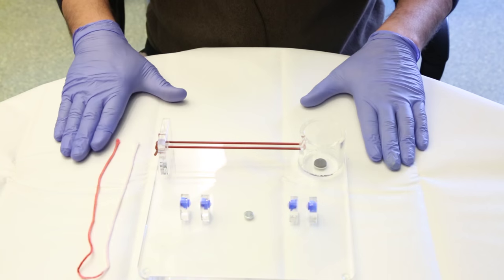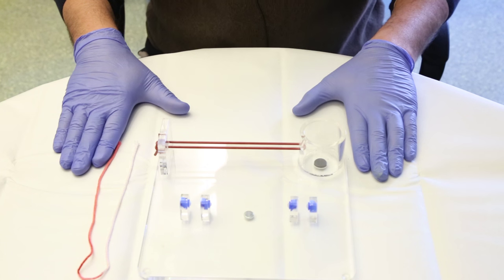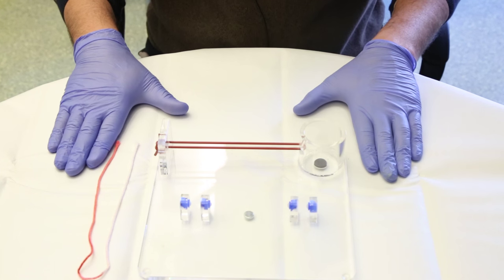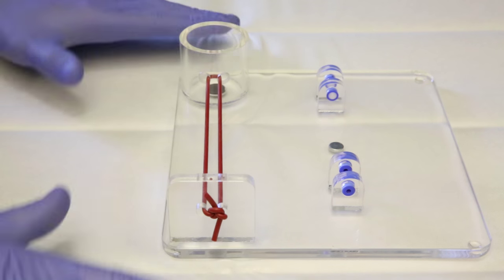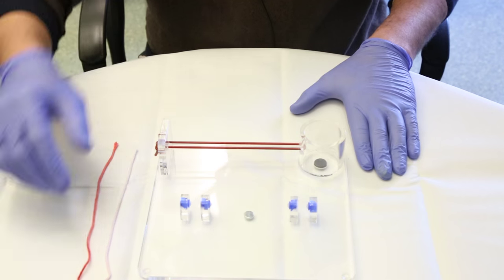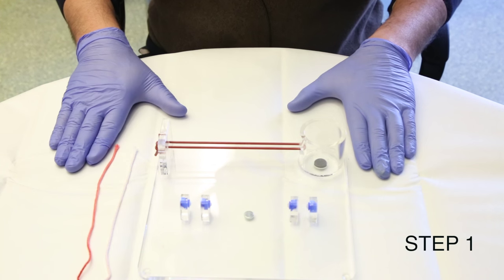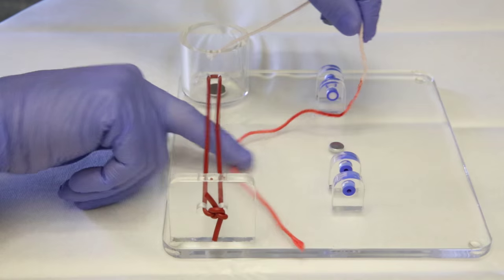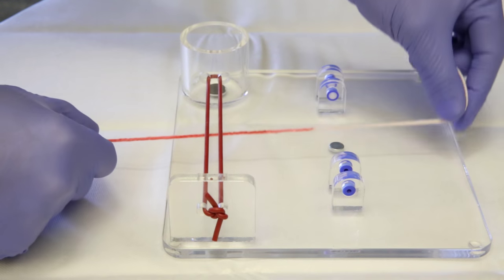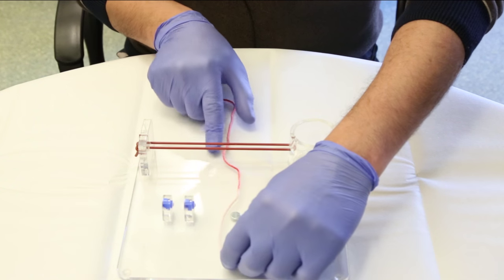This is to demonstrate how we make a single hand surgical knot. For this demonstration we'll use the knot tying plate and the training tie. As step one, we take the tie and set it on our training plate, passing the tie under the loop here.